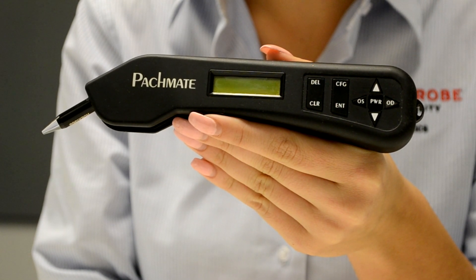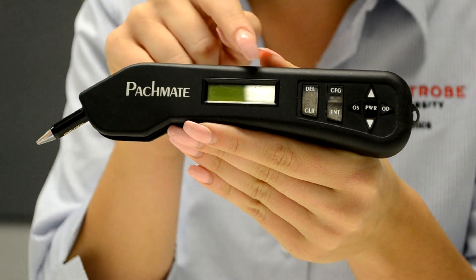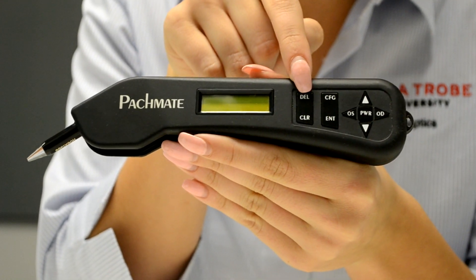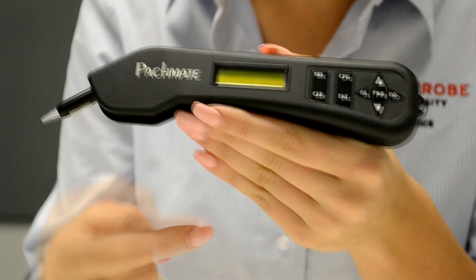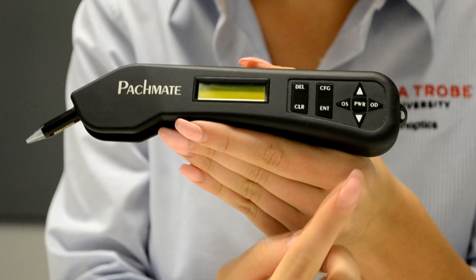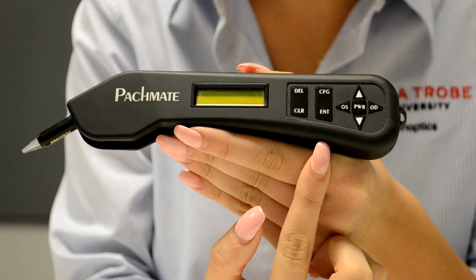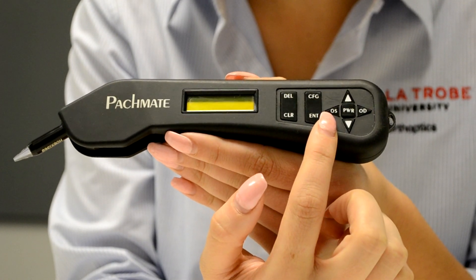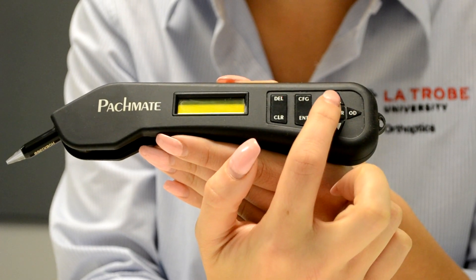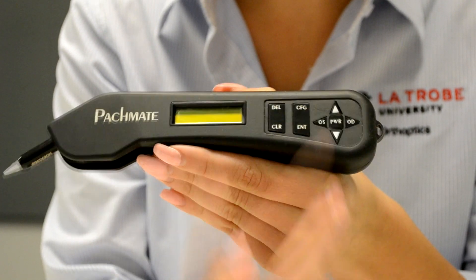The parts are as follows. This indicates the detachable probe that will be coming into contact with the patient's eye. The display screen will present the final measurement and any errors. The delete button will erase a single measurement if it is not needed. The clear button will erase all measurements. This is the configuration button. The enter button shows battery status and when pressed and held down will display IOP correction configuration. OS will display the readings of the left eye and OD will display readings of the right eye. The up and down buttons are used to scroll through individual measurements or settings options. The power button will turn on the pachymeter and turn it off when pressed and held down for a few seconds.